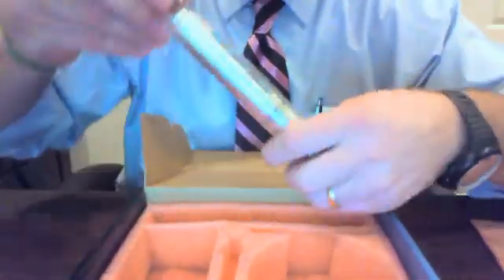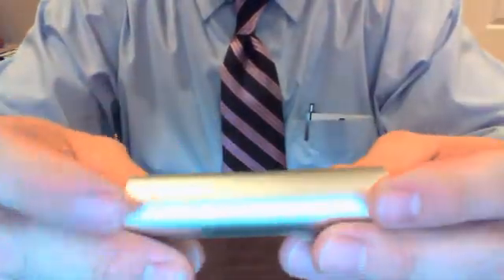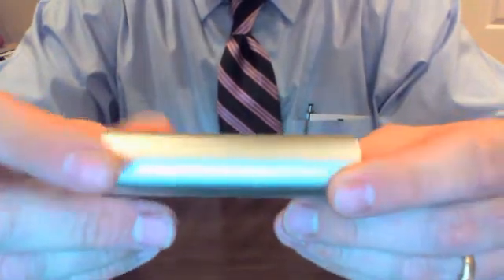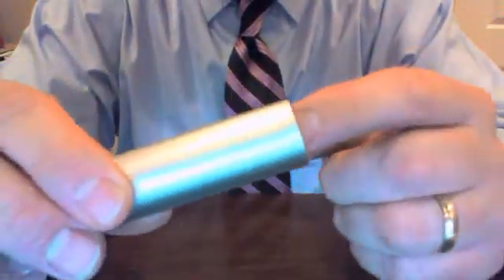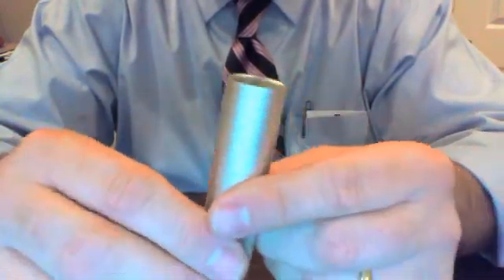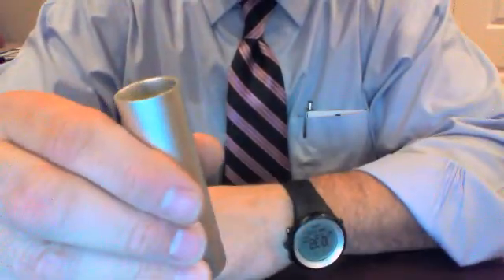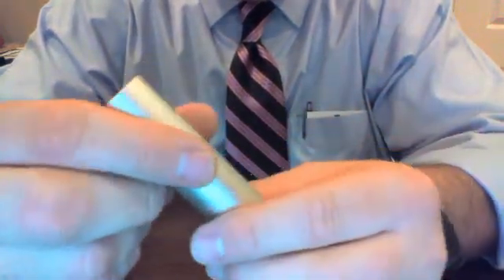The CureFX light comes in two pieces. The first piece is your battery. The battery is a standard lithium-ion battery pack. It's rechargeable, very similar to that of a cell phone, very sturdy. It's one piece. A lot of the different cordless cure lights on the market have a two-piece — a separate loose battery — and that can present problems with losing charge and it's just not as sturdy. So this is our battery pack; it's aluminum-coated and very, very robust, easy to wipe down.